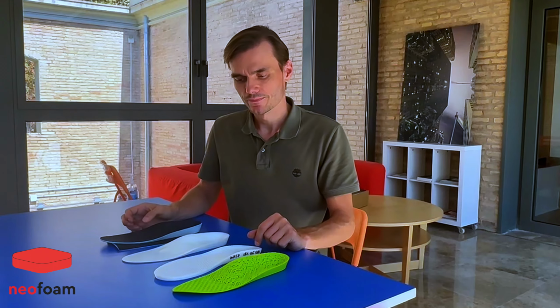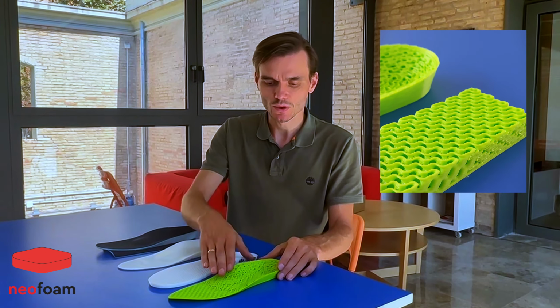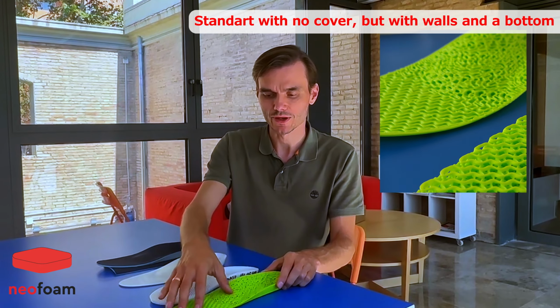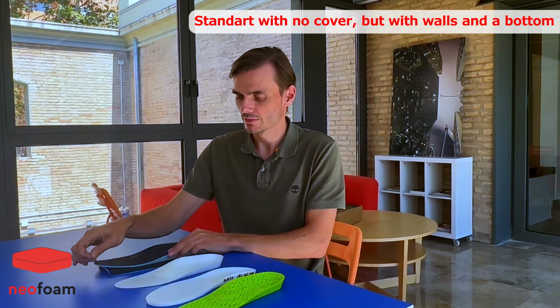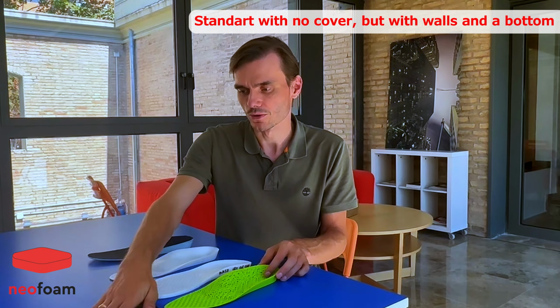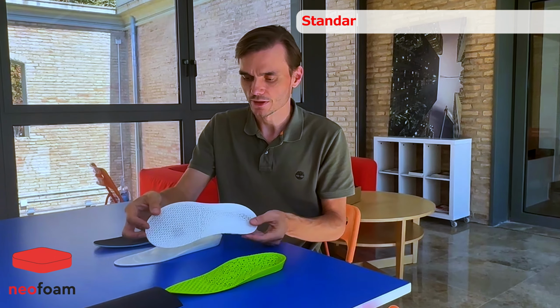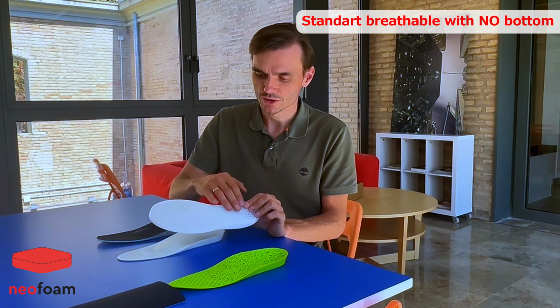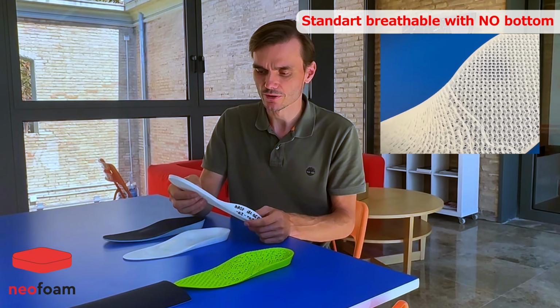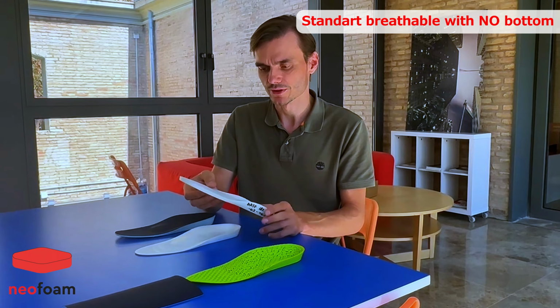So what other top surface finishes can we do? We can do a standard one with the walls, with the bottoms, but without the top surface. So you will apply your own top material, maybe with the logo or just with some different colors. Another option is this one, because it doesn't have a bottom, and as a result it is a really breathable structure. It is very good for diabetes because the air ventilation is very critical for such insoles.